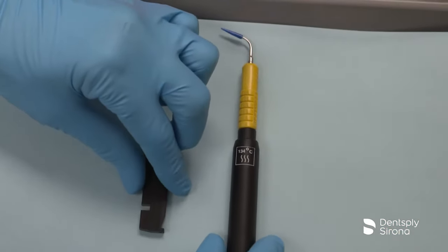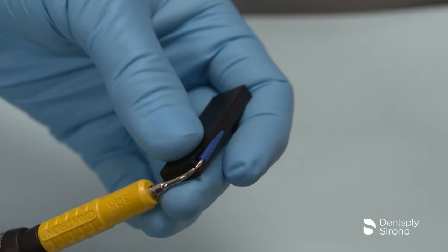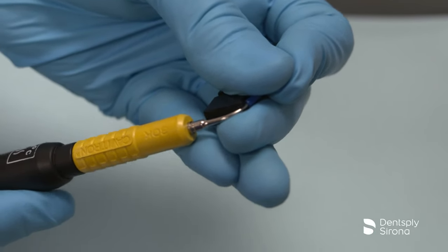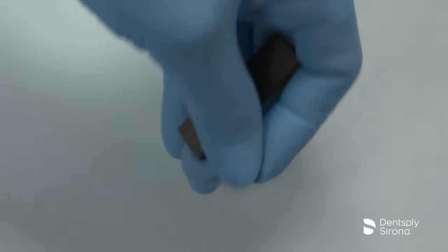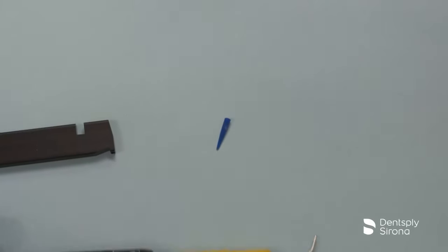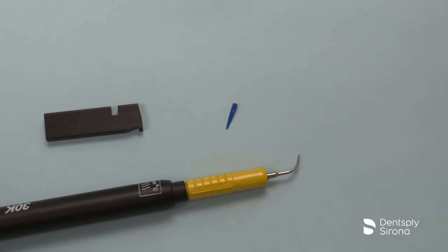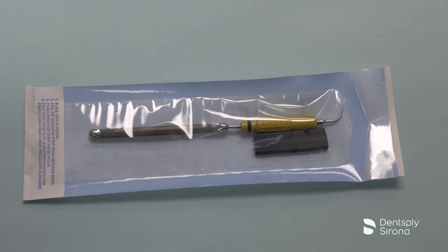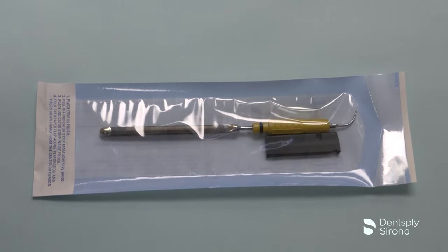To prepare the insert tip for sterilization, keep the insert in the handpiece and place the tip into the slot on the wrench. Place your thumb and index finger over the disposable Profi-Tip, then gently push the handpiece downward and the tip will disengage. Discard the used plastic Soft Tip Disposable Profi-Tip in accordance with applicable standards for disposable biohazard materials. Proceed with sterilization of the ultrasonic insert and soft tip wrench together.